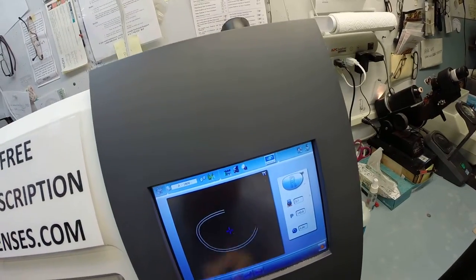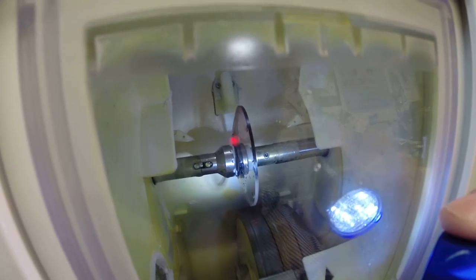It's going to measure the lens to make sure it's large enough to fit into the frame, which it is. It's just a routine operation, but it also measures the thickness of the lens at every point to know exactly and precisely where to place the bevel so you have the best cosmetic fit possible. In just a moment, the wheels start spinning and the lens is going to drop down onto the cutting wheel.